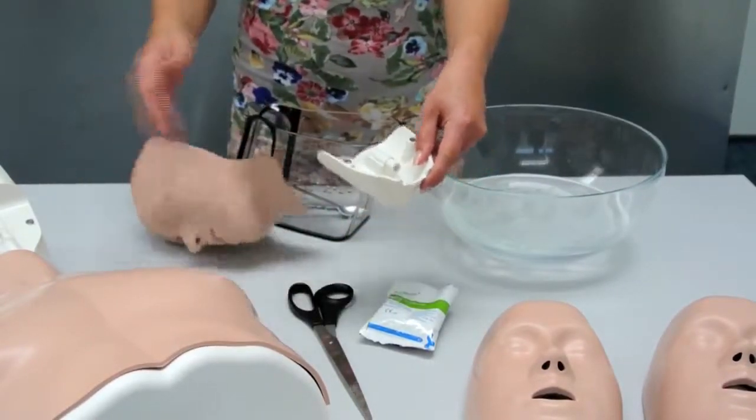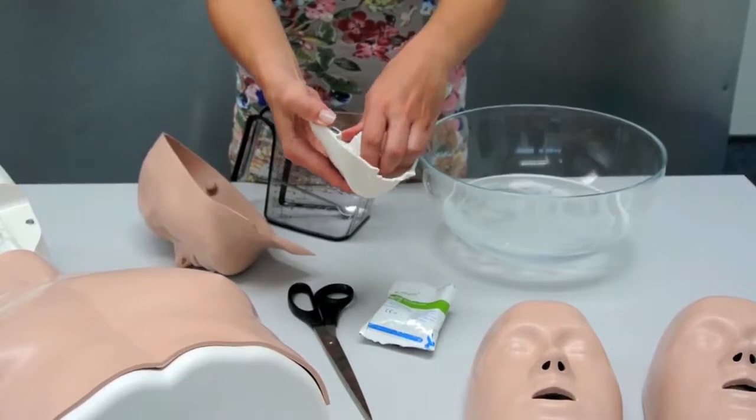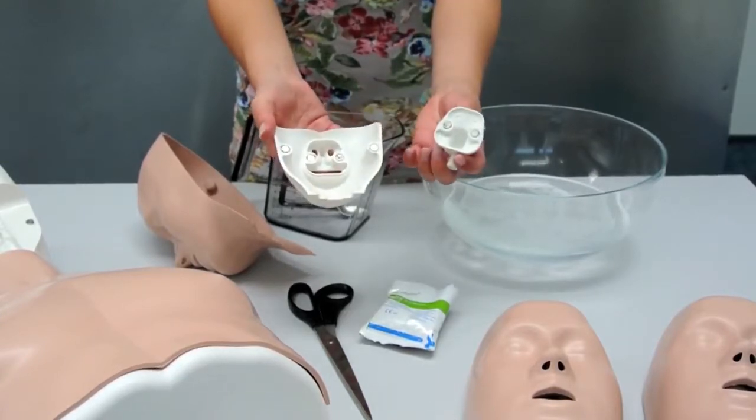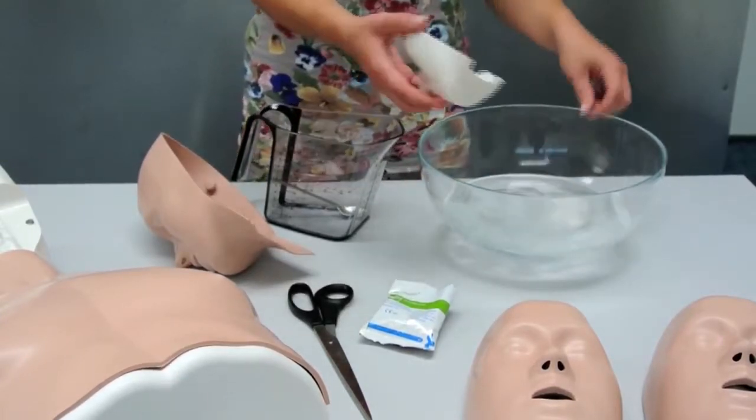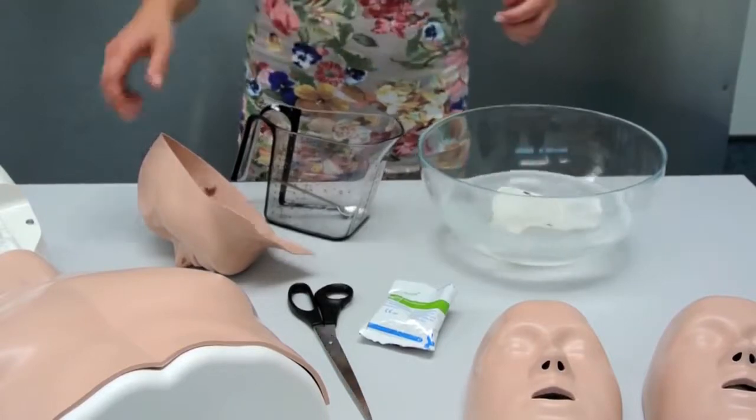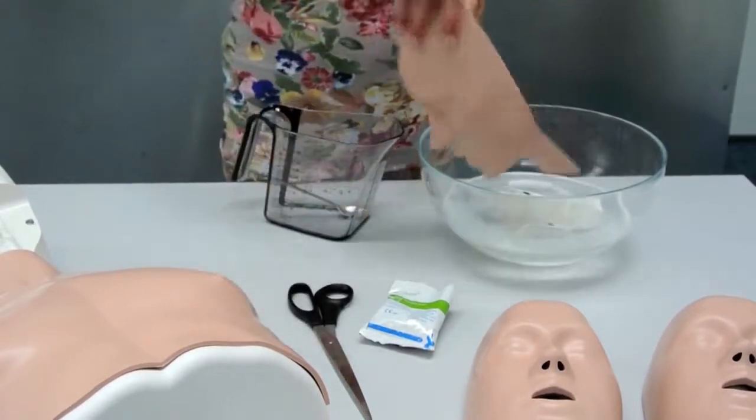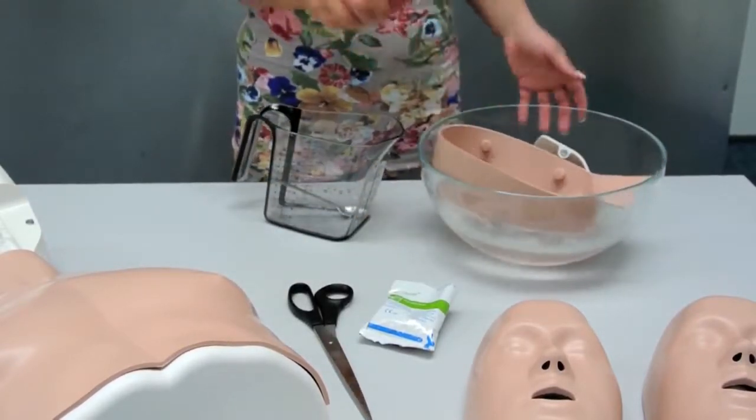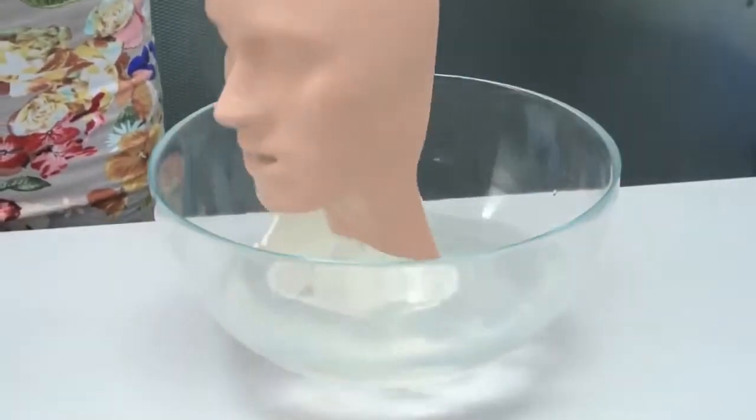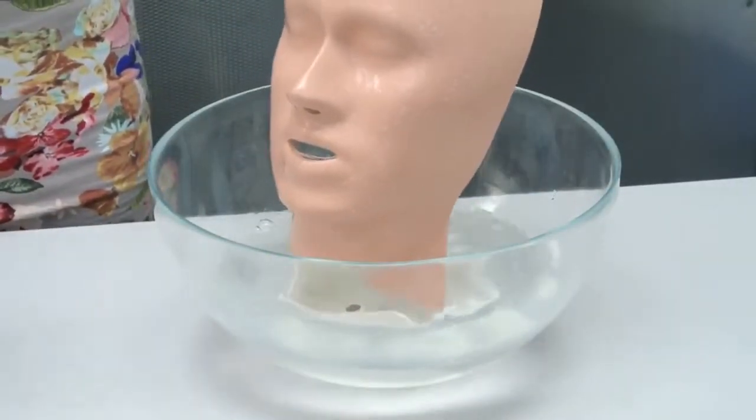Place the lung bag socket, jaw insert, and face skin into the soapy water. The cleaning process should take approximately 30 minutes.